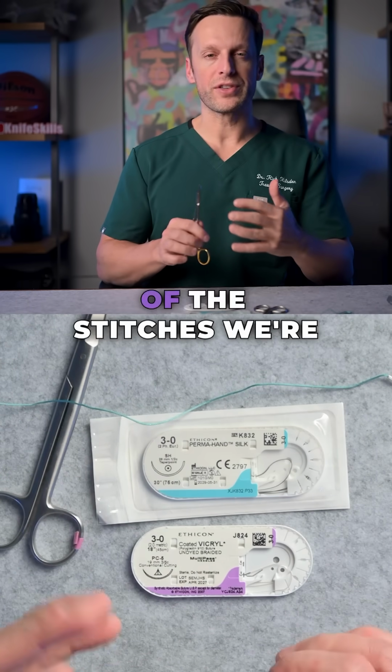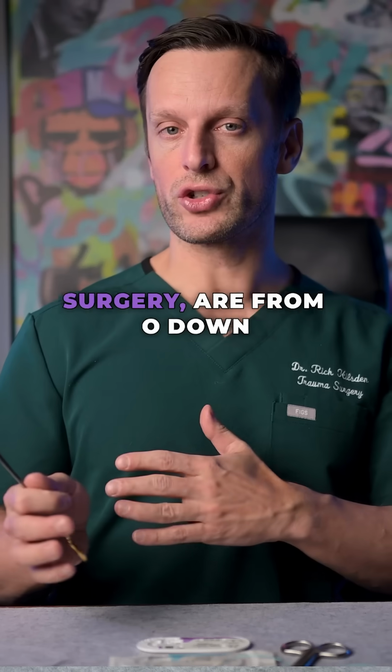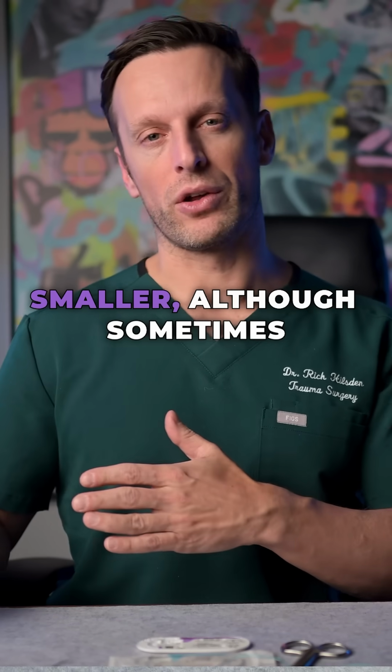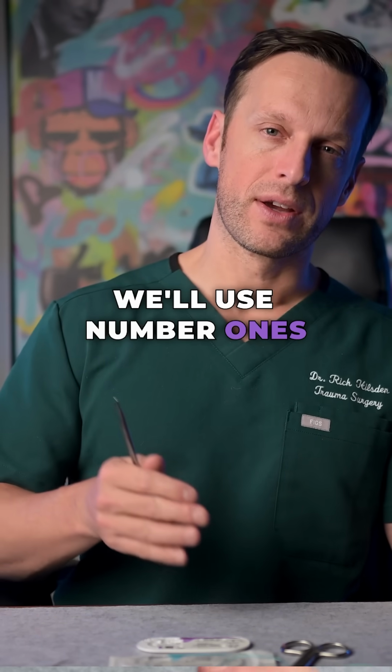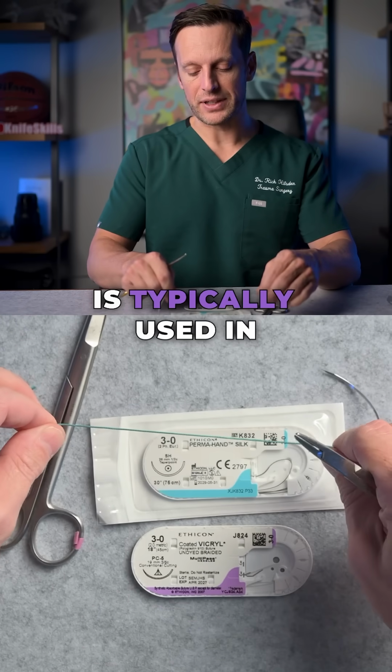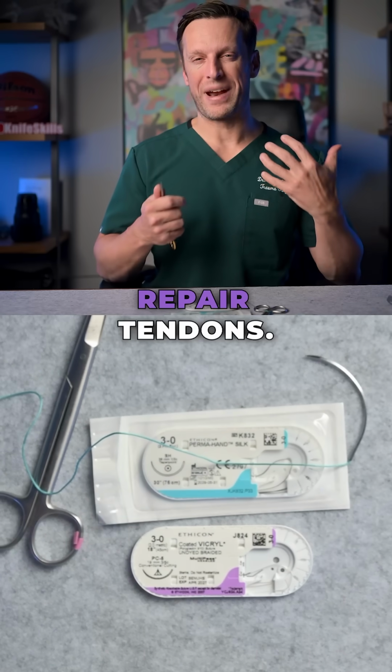Typically though, most of the stitches we're using, at least in general surgery, are from O down smaller, although sometimes we'll use number 1s or number 2s occasionally. Number 5 like this is typically used in orthopedic surgeries to repair tendons.